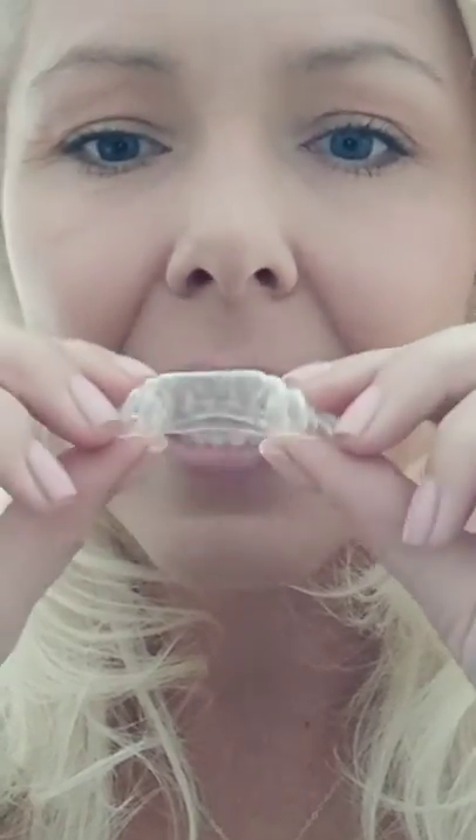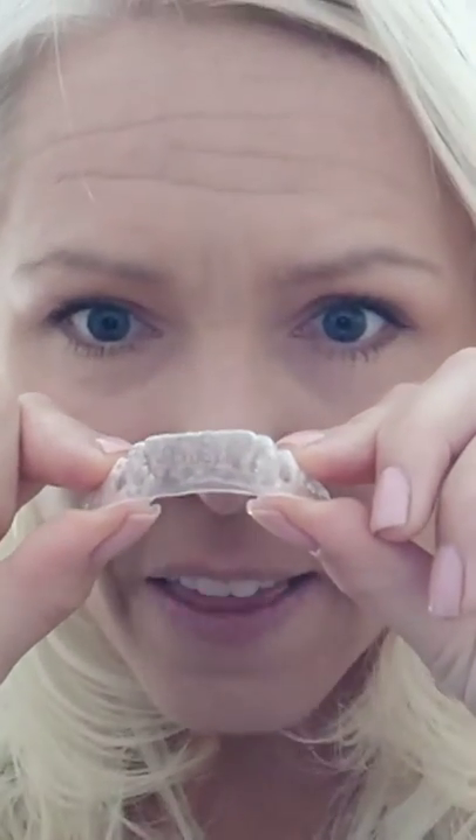So like I said, I'm officially on six months and my bottoms look straight — perfectly straight and pretty straight this way too. I noticed that there's like a slant in my teeth, but I think it goes away this time. It looks straight to me anyways.